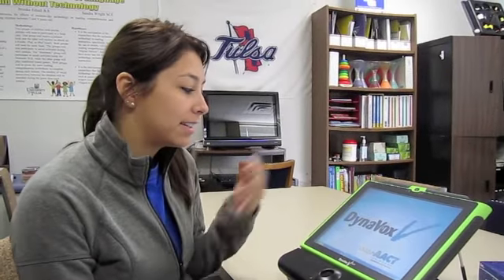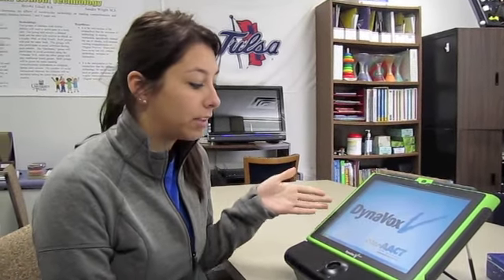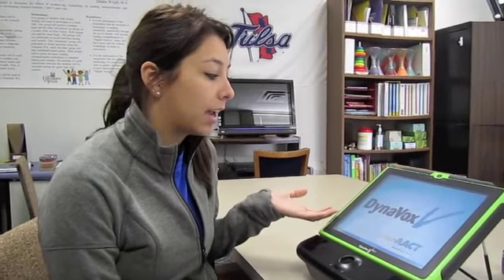So our device is the Dynavox VMax with the Eyegaze accessory, and it is produced by Mayer-Johnson. I'm going to show you how to turn the device on and how to set up a new user.